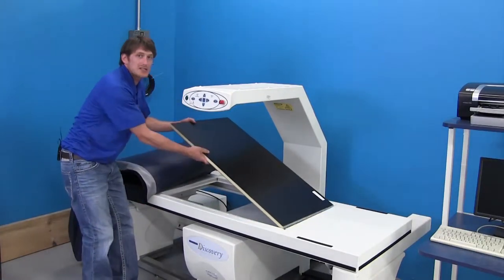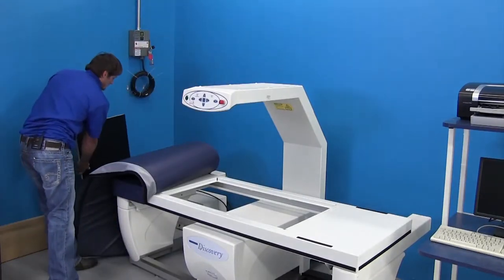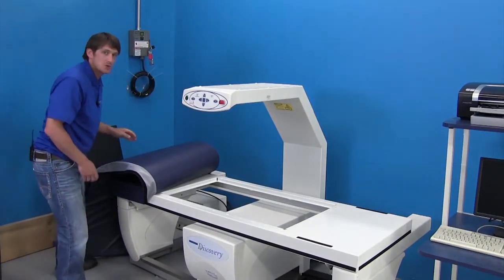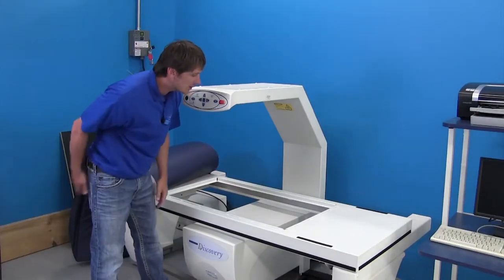Pop the centerpiece out itself, which will actually give you access to the high voltage tank area.